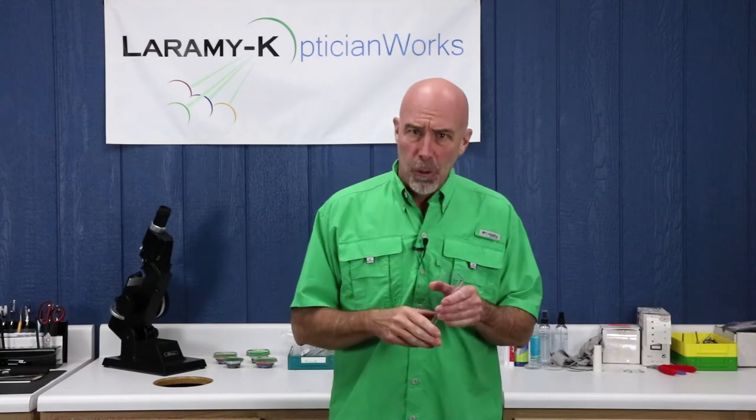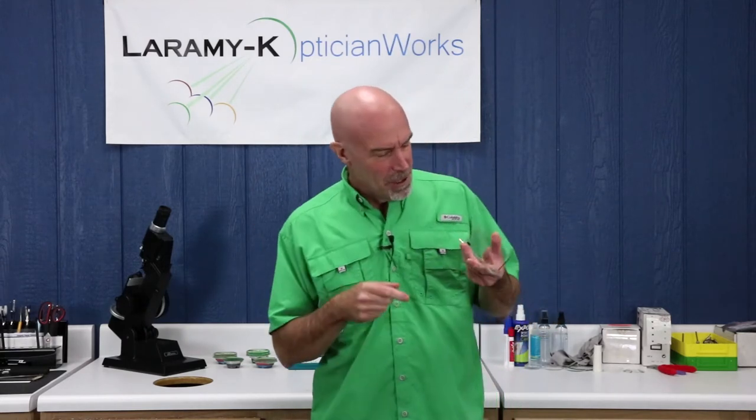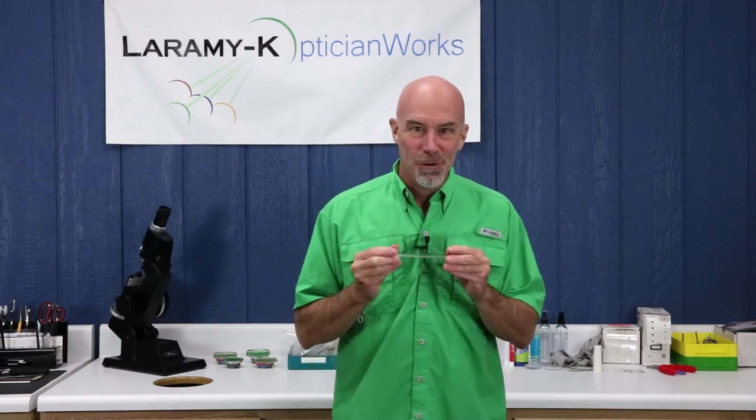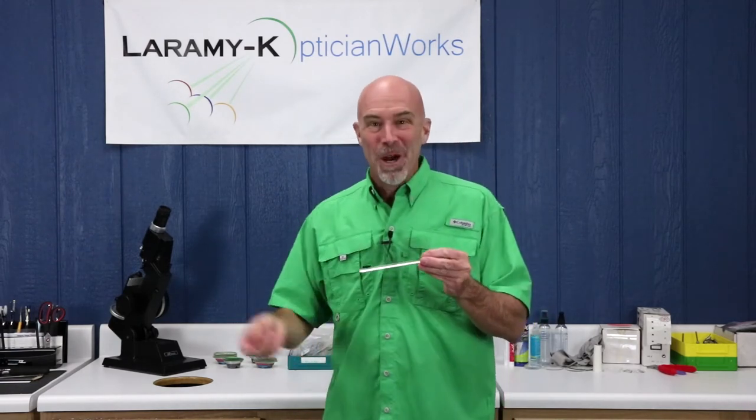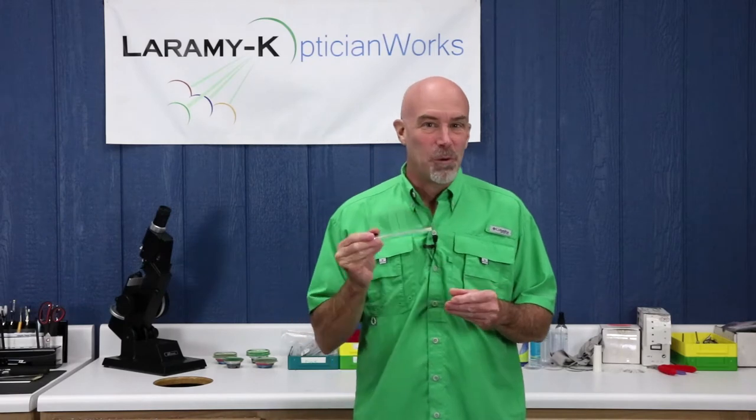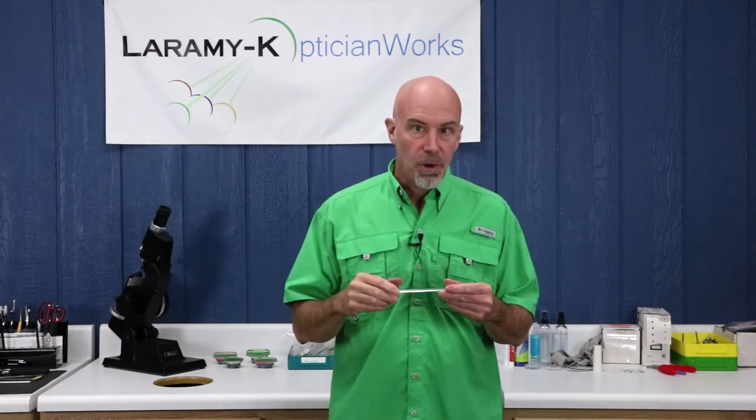Oddly enough, a little like our PD stick which we never use to take PDs, this RX aligner never really has much to do with aligning RXs, but it sure does have a lot of other great uses. I'm gonna hit a couple of high points and show you what I use it for, and the points that I look at when I'm using it as a reference tool.